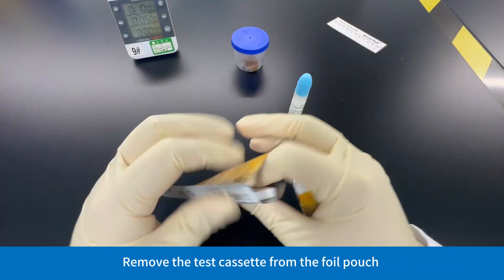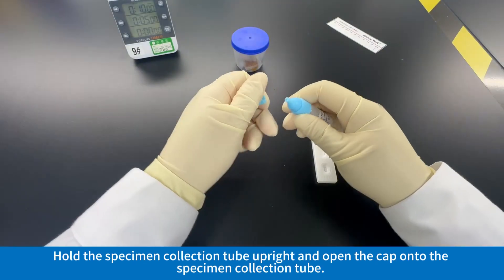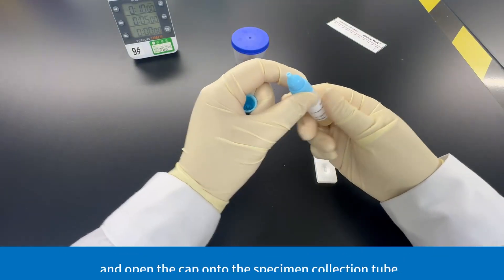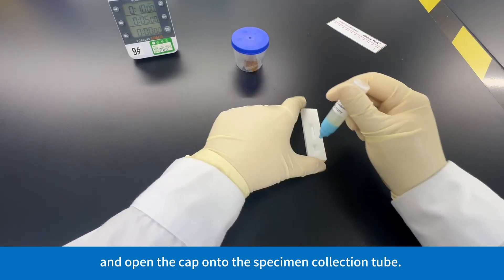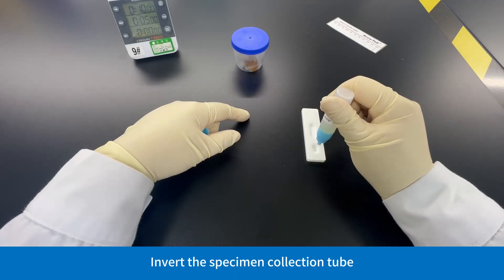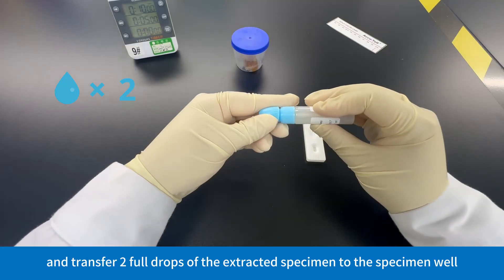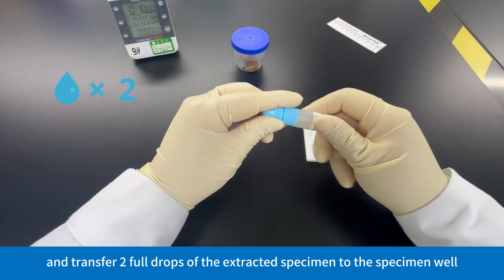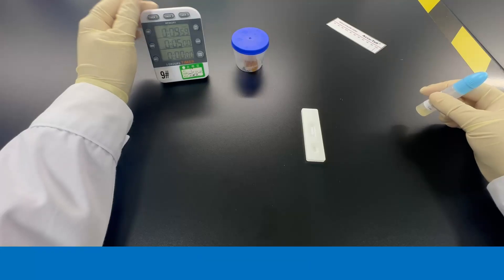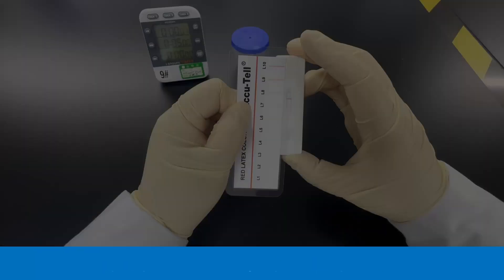Remove the test cassette from the foil pouch. Hold the specimen collection tube upright and open the cap. Invert the specimen collection tube and transfer two full drops of the extracted specimen to the specimen well, then start the timer. Avoid trapping air bubbles in the specimen well.